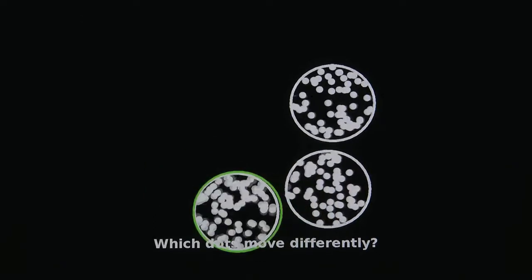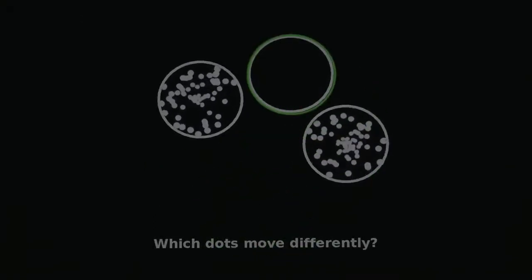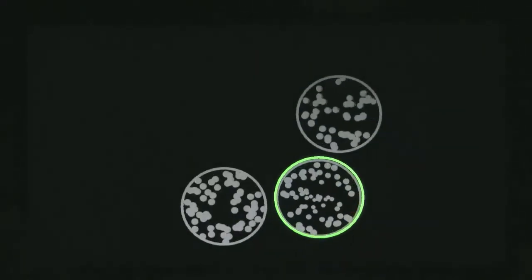The last perceptual test is referred to as motion discrimination. It tests the patient's ability to distinguish the motion pattern that is different from the others. The perceptual tests are capturing the point at which the patient can no longer respond correctly, otherwise known as their perceptual threshold.